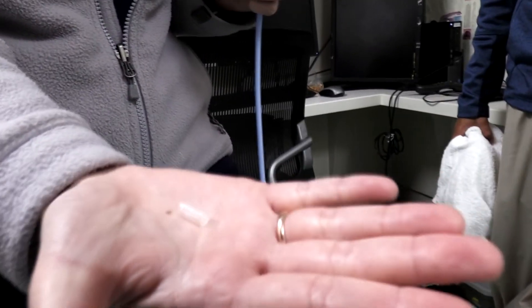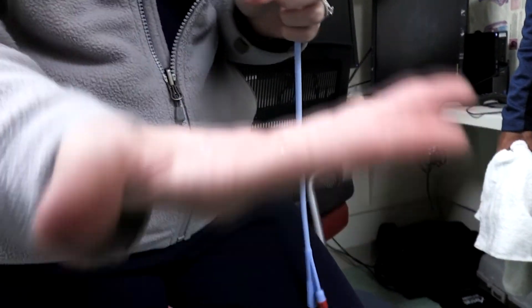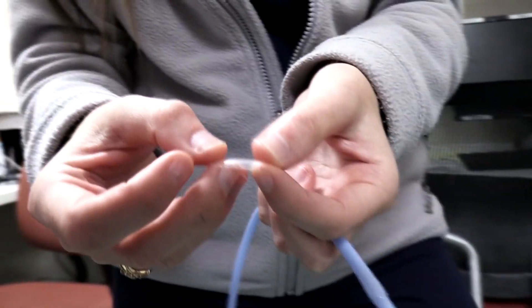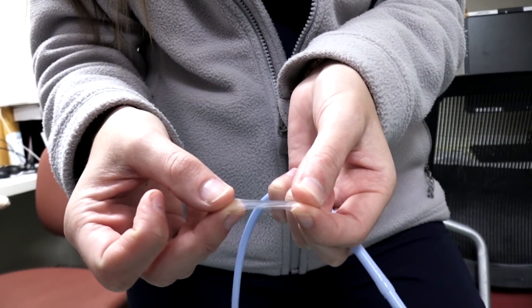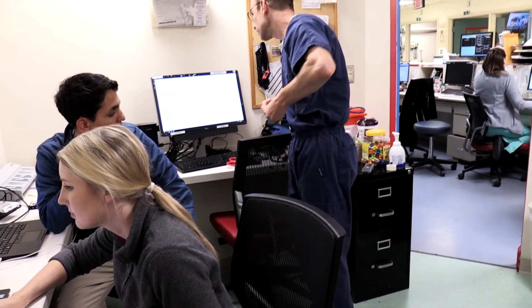Now I want to see if there are any fragments that flew off. This piece here is the balloon fragment — that would be a fragment left in the bladder. The patient should be past that point, but you need to be aware of that risk.